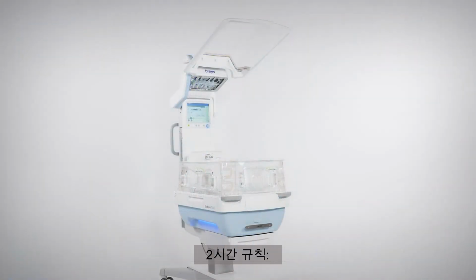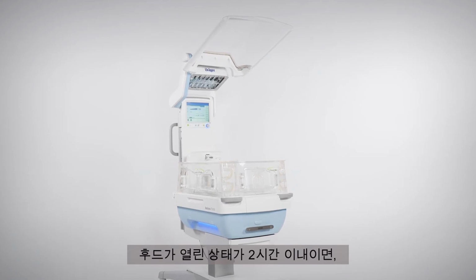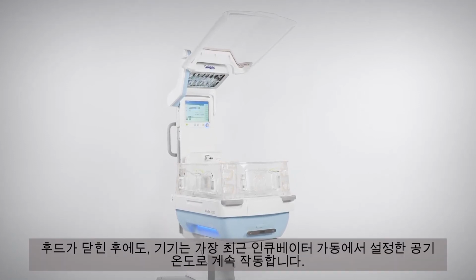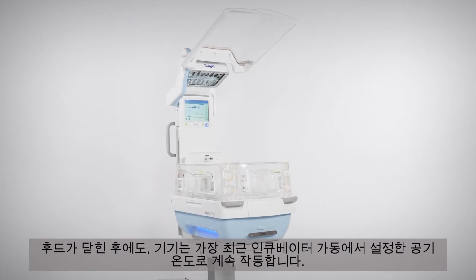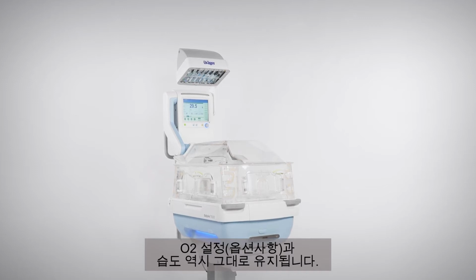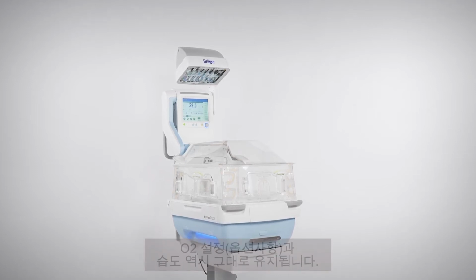The 2-hour rule. If the hood was open for less than 2 hours, the device continues operating with the most recent air temperature settings for incubator operation once the hood is closed. The settings for oxygen, if you have this option, and humidity are also retained.